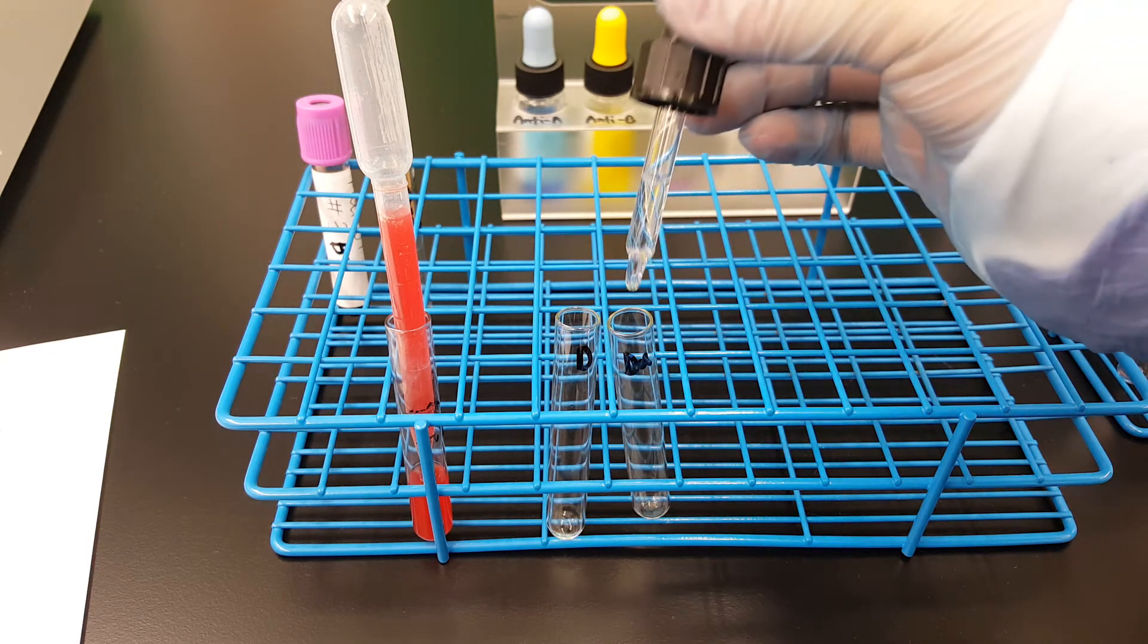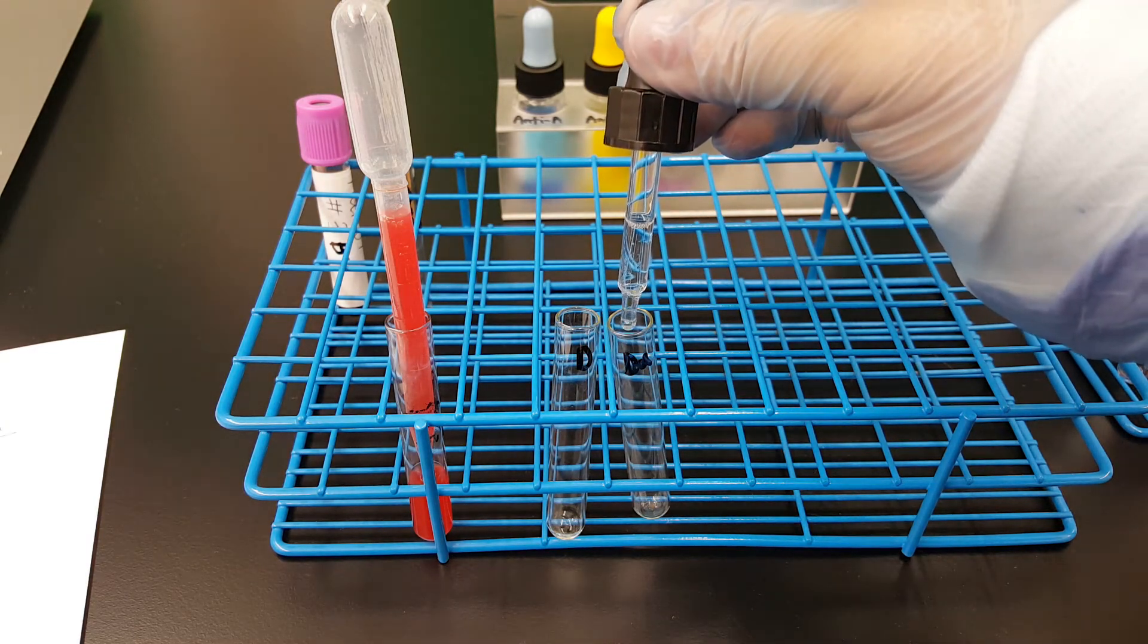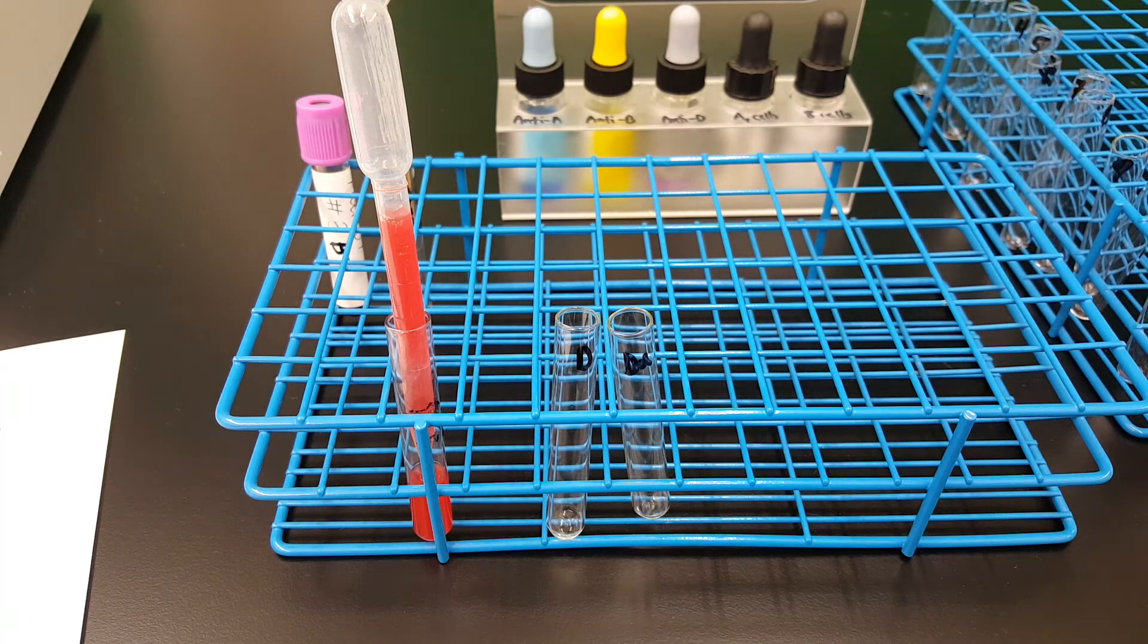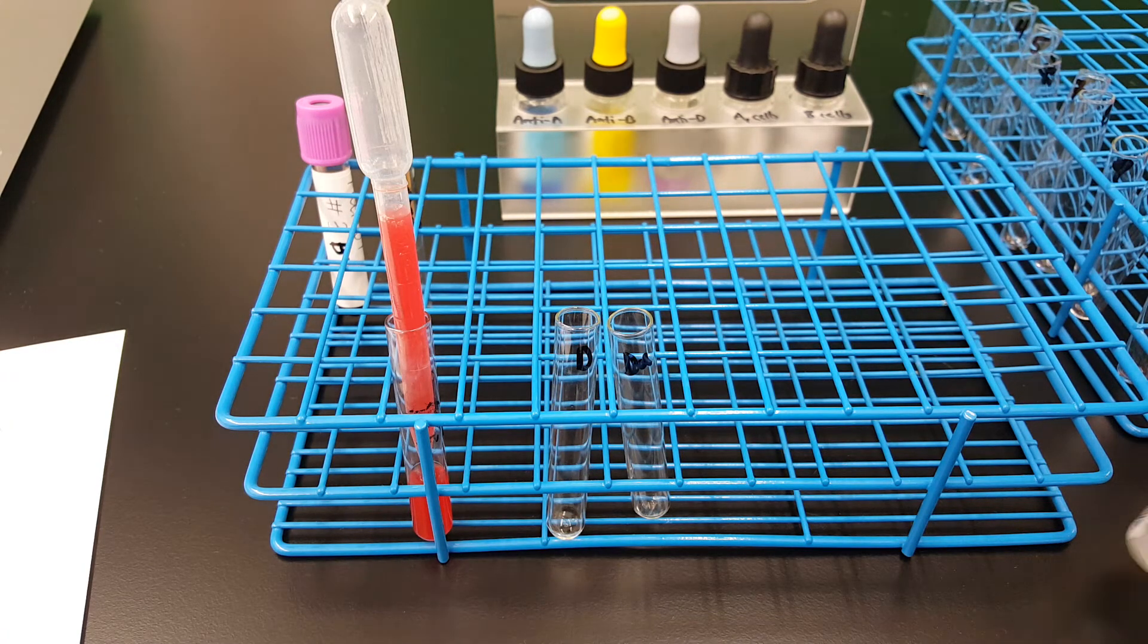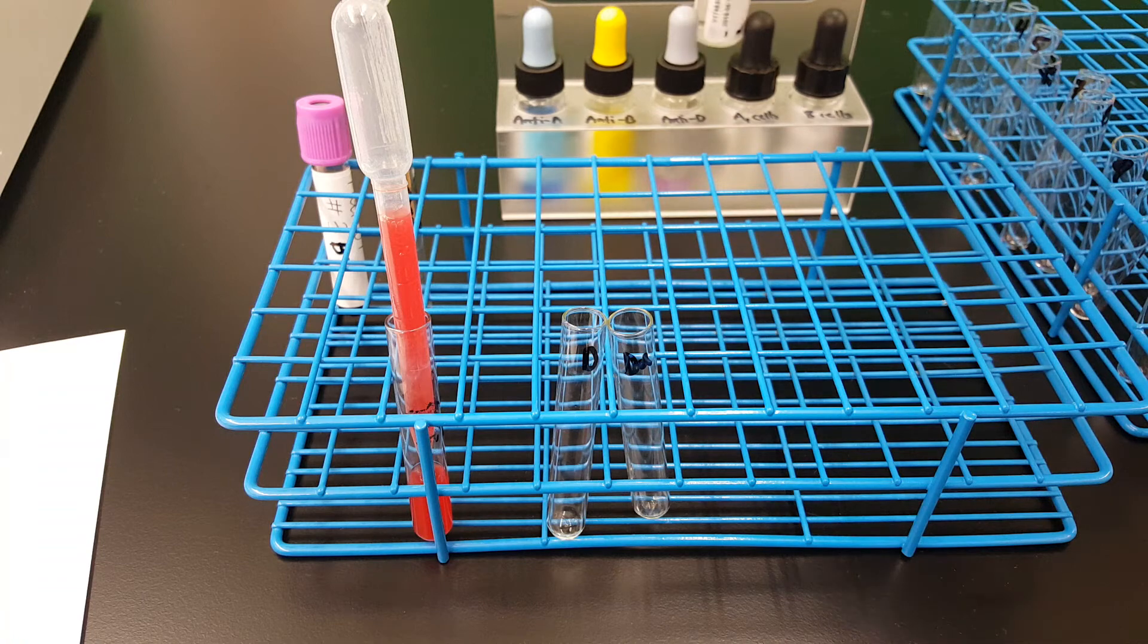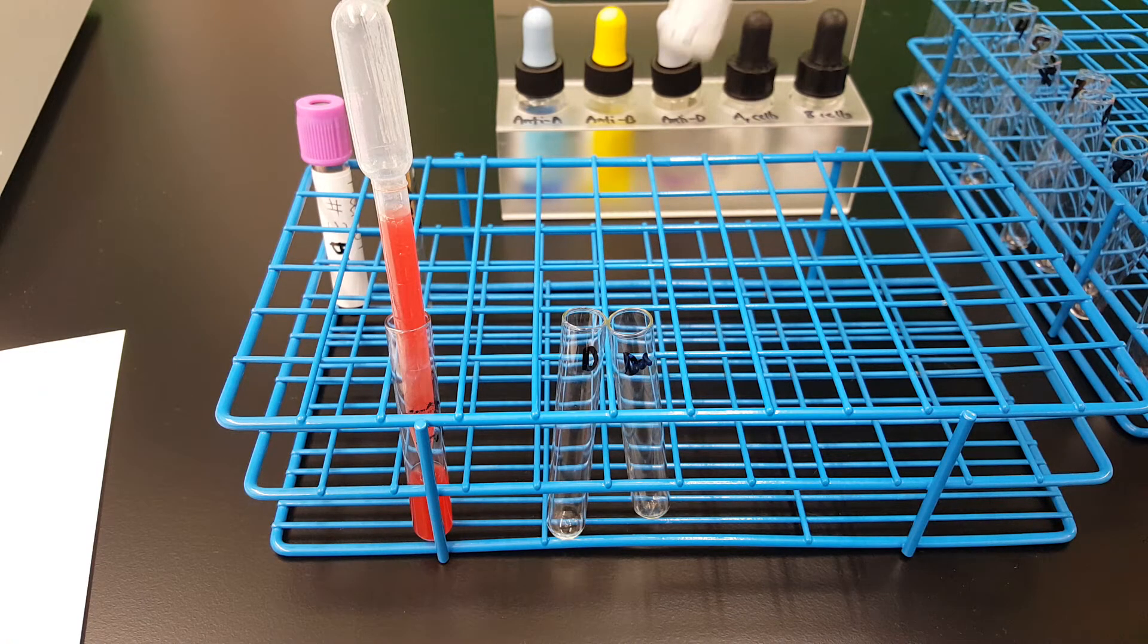And for any prenatal patient to see if they would react to D due to previous pregnancy.